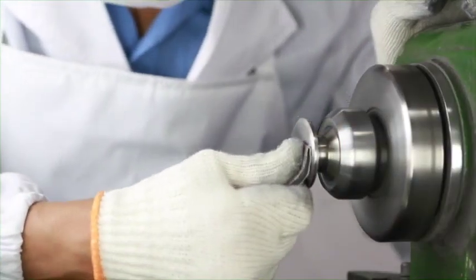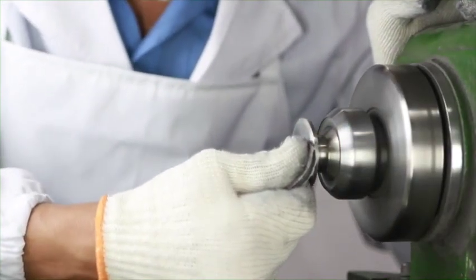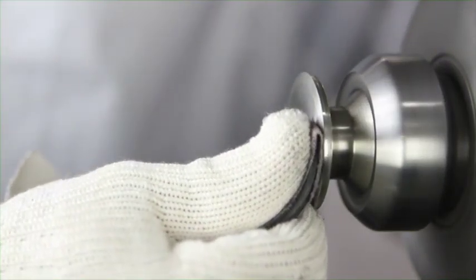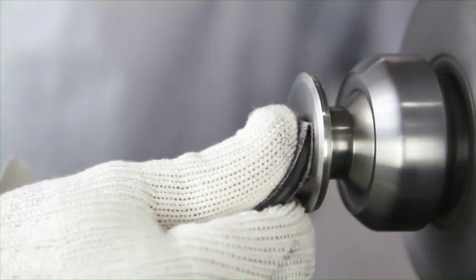Like all MDF instrument stethoscopes, the MDF 767 and the 767X are handcrafted and come with a jewelry-grade finish. They also come with a lifetime warranty that covers tubing as well as free parts for life. The MDF 767 and 767X are just another example of how we value tradition and innovation to create superior products for the modern medical professional.